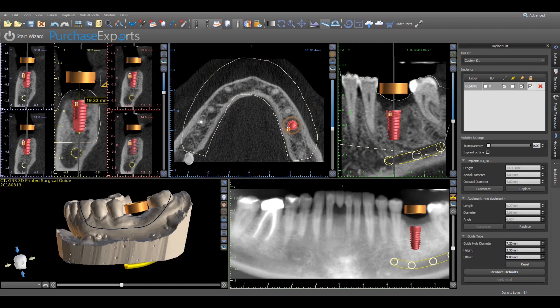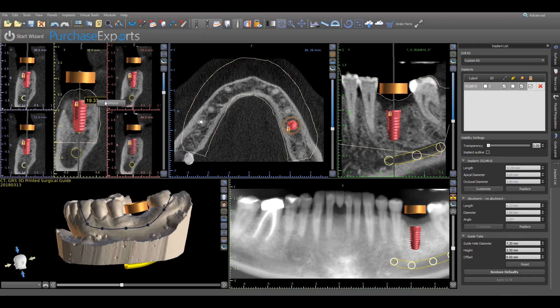This measurement will be saved and can be referenced at any time. It's important to note that an additional 1.7 millimeters needs to be added to this measured length if a narrow GRS drill sleeve will be used, or 1.5 millimeters for a regular or wide GRS drill sleeve, to account for the flange height of a GRS drill sleeve above the guide tube upper platform. If the measurement needs to be removed for any reason, simply deactivate the measurement tool, place the cursor on the display box, right click the mouse button, and then left click remove when displayed.